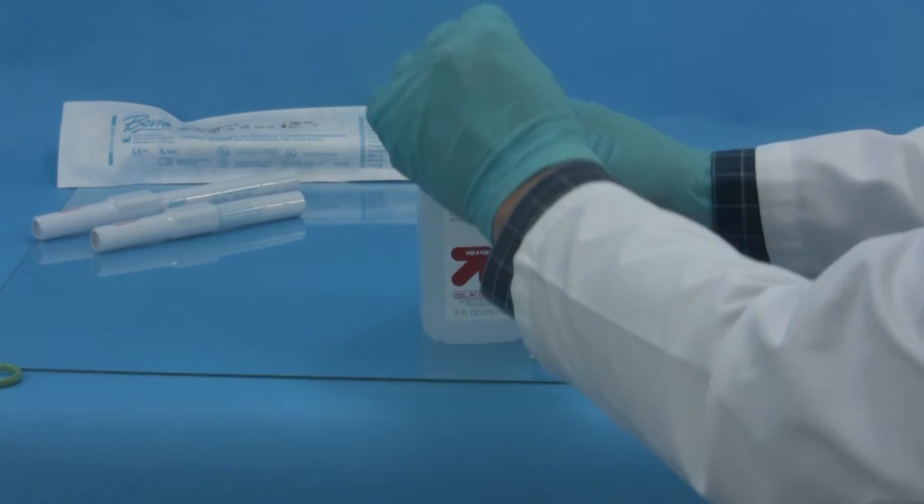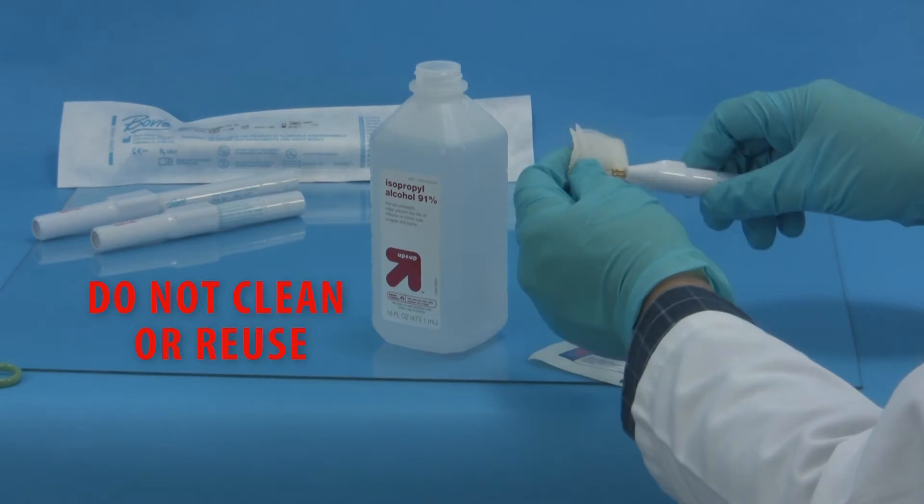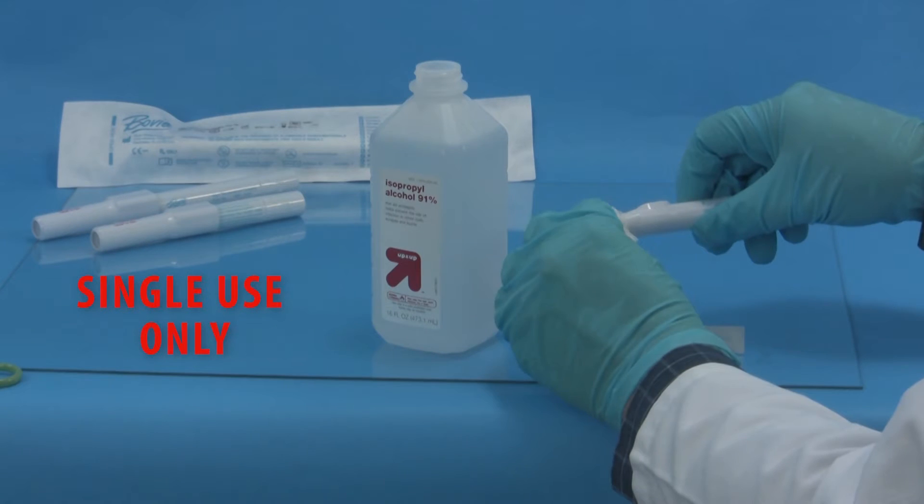This medical device cannot be effectively cleaned and or sterilized by the user and therefore cannot be safely reused. It is intended for single use only.